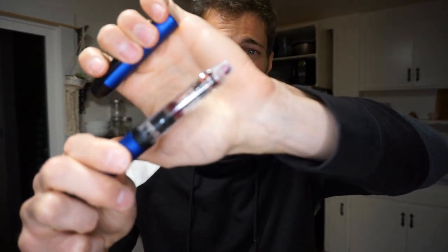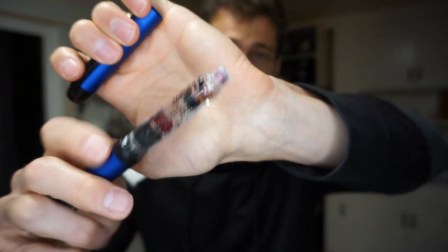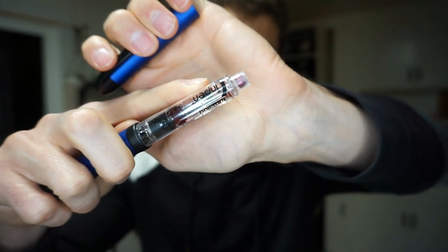I am super tall so I'm gonna have to kind of bend my knees a little bit. We're gonna change out the InPen and do it real quick since I am due for it. You can tell — zoom in there — that red line at the end is when the insulin ends. It looks like it's actually gone, it looks like it's past due, so we're gonna switch that out.